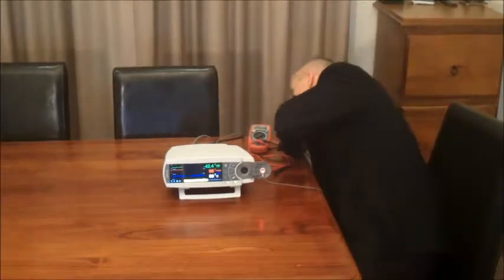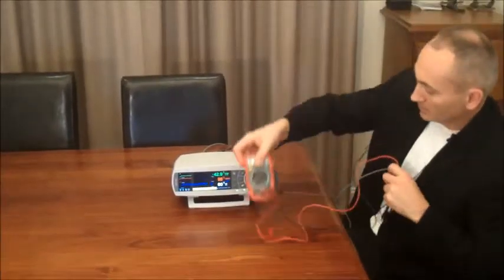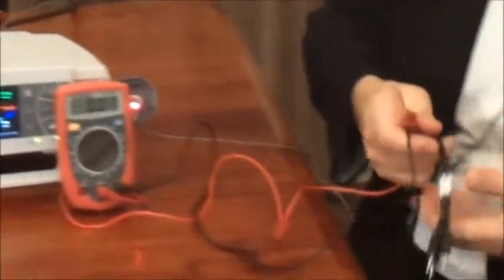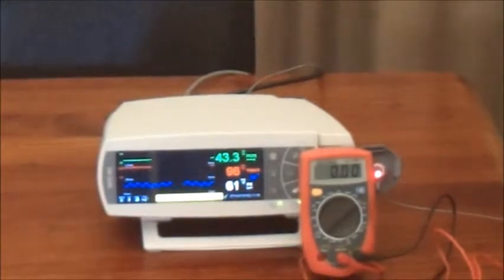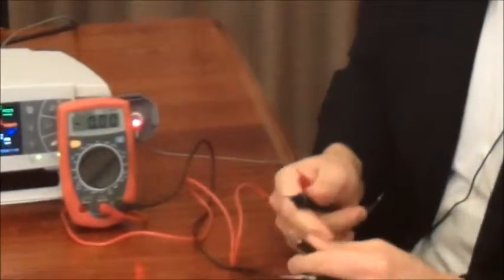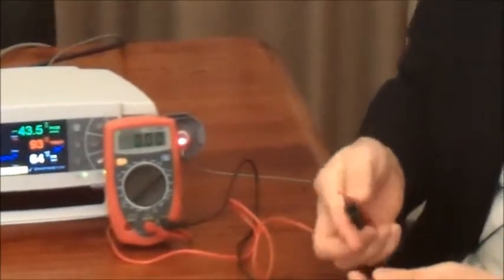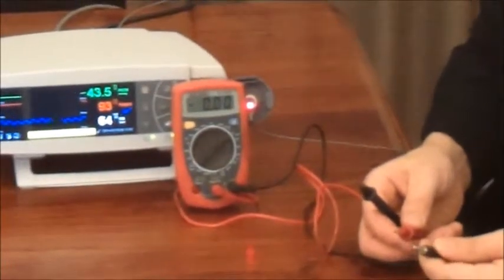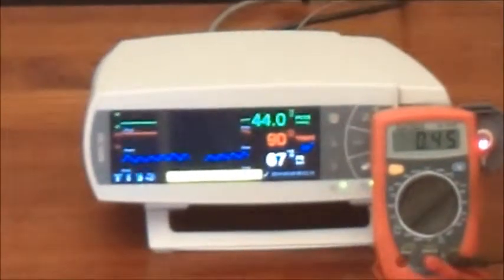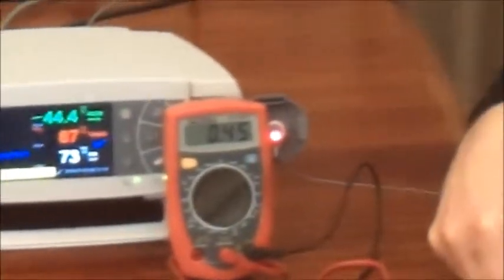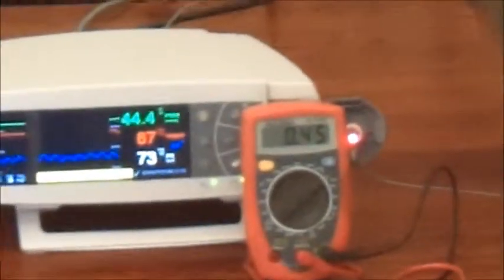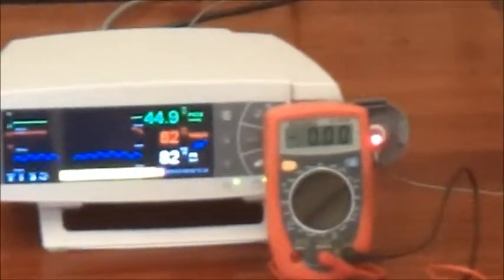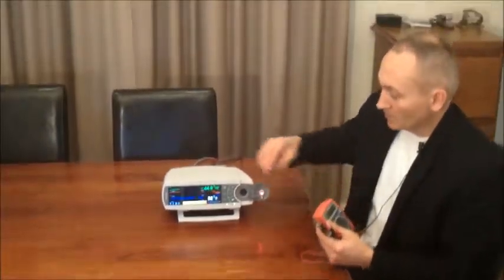What I'm going to do to illustrate that is show you on the multimeter here. Let's take the CO2 channel. If we assume what we said was about right and that this is producing 0 to 1 volts meaning 0 to 100 millimeters of mercury, then we're going to expect on the CO2 channel volts of about 0.43. So let's try that—put the right pins on—and look at that, we've got 0.45. That's actually just gone up because this is a real patient that's been recorded here. On the sats channel we should have about 0.84, and again very close, 0.86. And that is how we calibrate our PSG machine.